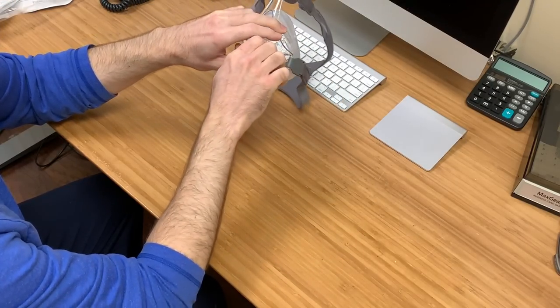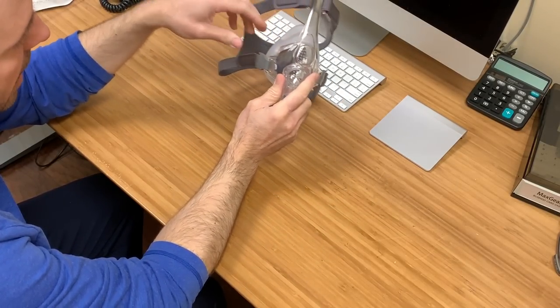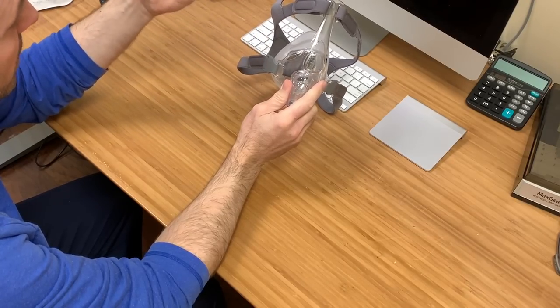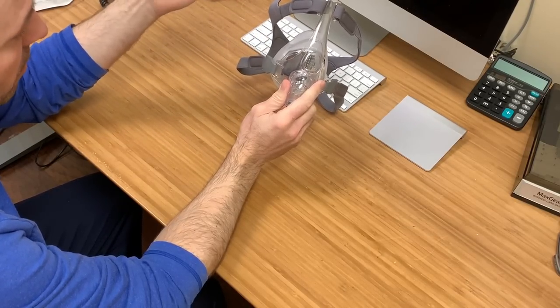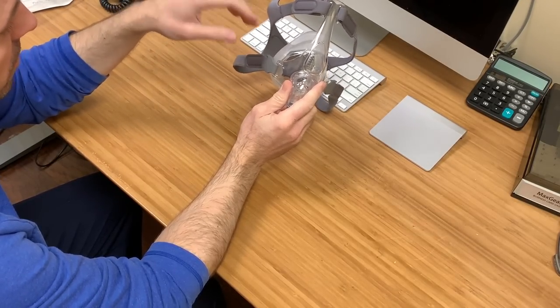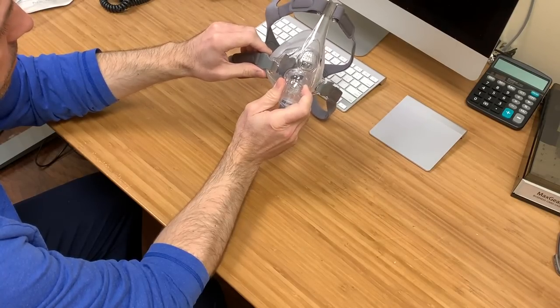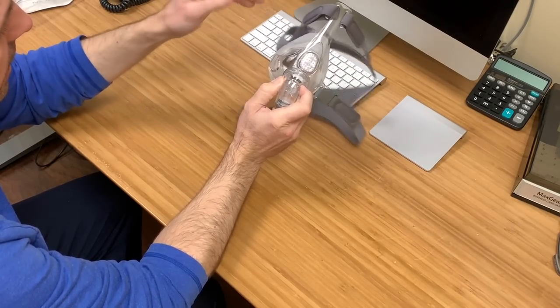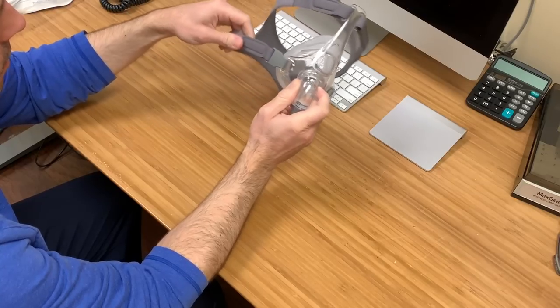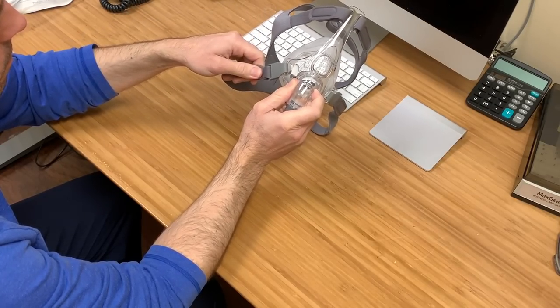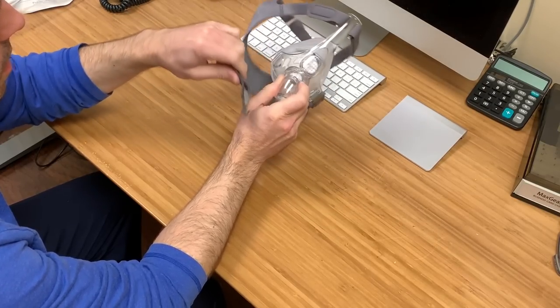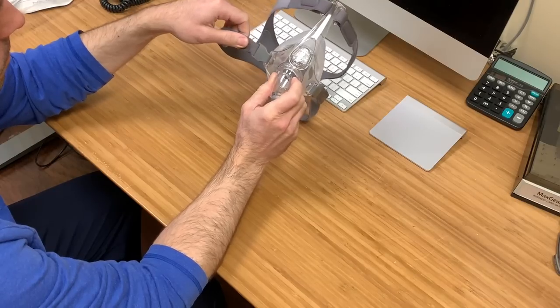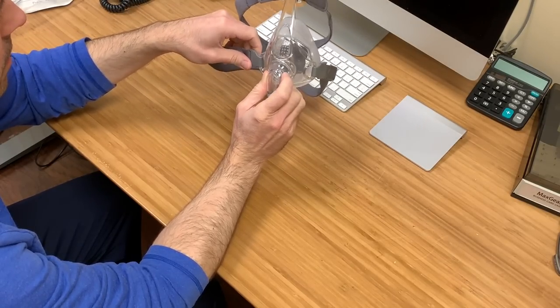What's great with the clips too is if you have somebody who has dementia, who has anxiety, paranoia, some of the older folks, if they panic, they'll come right off. They'll stick on good, but if you shift them down or up, they're popping right off. So that's a great feature.